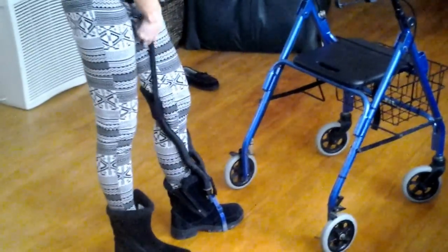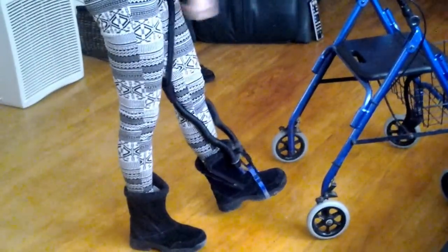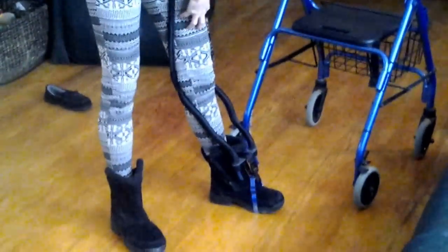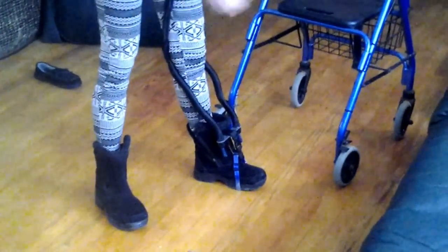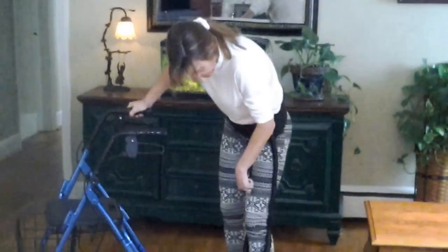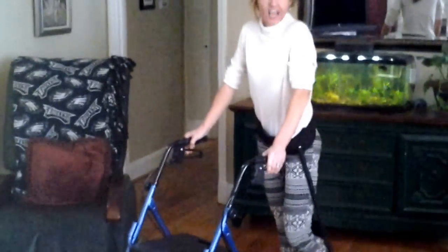When I go to step forward, it pulls on the cord and just lifts my leg — it shortens the cord and pulls it up when I reach forward. And see, it's also pulling up my toe, so I have more clearance. Because I'm pretty spastic in this muscle and it fires at the same time causing my knee to lock out, it's a bit more difficult. When I get the Botox injection next week, they inject my quadriceps and it'll make it easier to bend, so I'll be more likely to bend this leg and follow through.